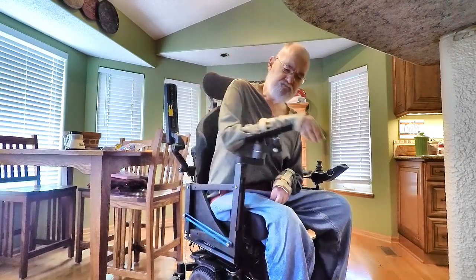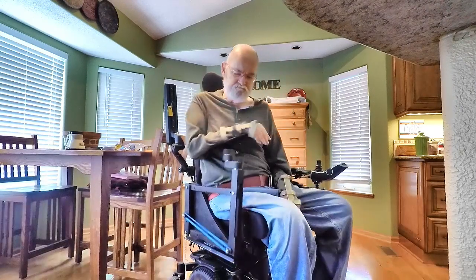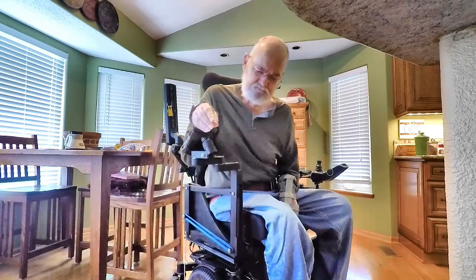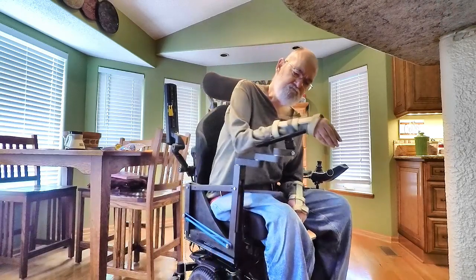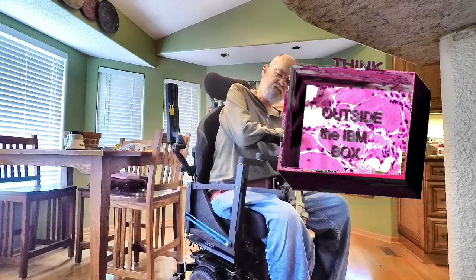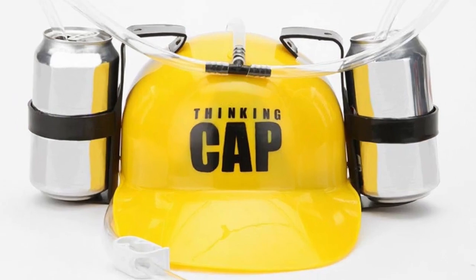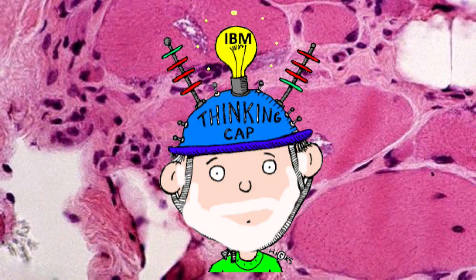So why do I share my homemade invention with you? I don't expect any of you to follow my lead and build a one-arm exoskeleton system to fit your power chair, but the meaning of showing it to you was to show you how I never stop looking for ways to improve my current and future situation with IBM. I'd like to chat some more with you, but I've got to put on my thinking cap and come up with more ways to cope with my Inclusion Body Myositis. Until next time, keep reaching for the stars!